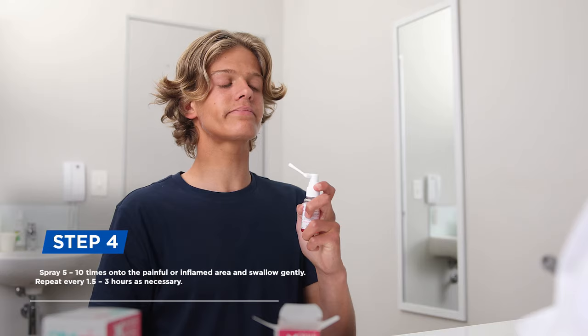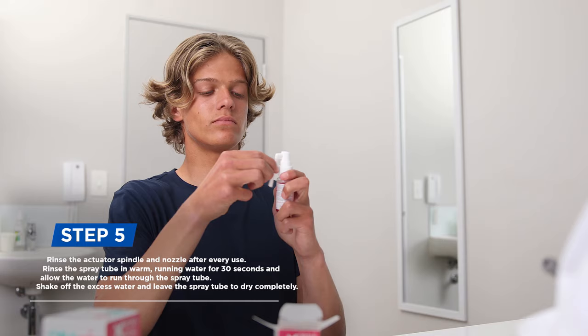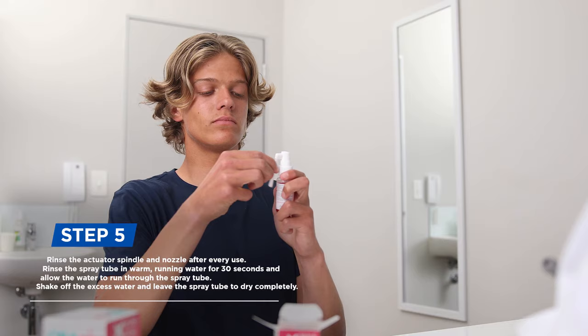Repeat every one and a half to three hours as necessary. Step 5: Rinse the actuator spindle and nozzle after every use. Rinse the spray tube in warm running water for 30 seconds and allow the water to run through the spray tube. Shake off the excess water and leave the spray tube to dry completely.